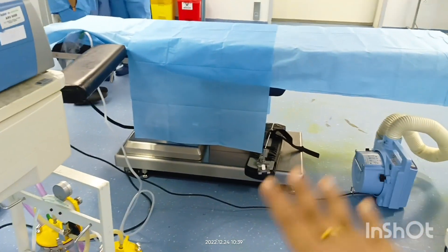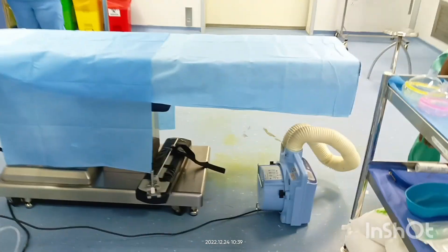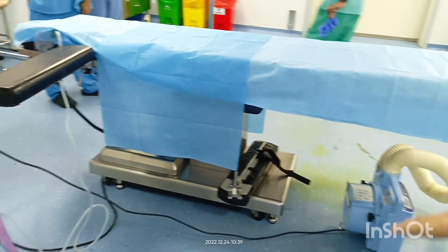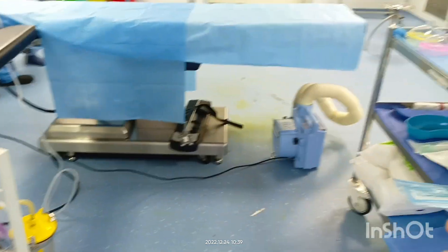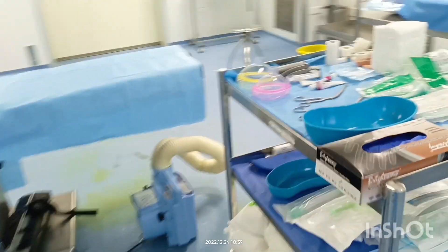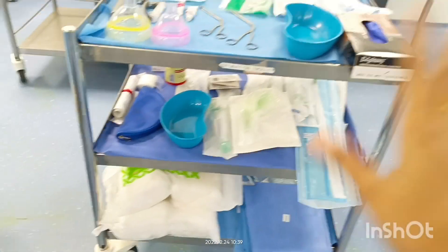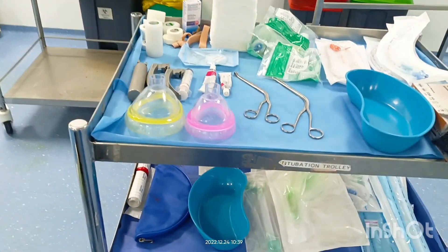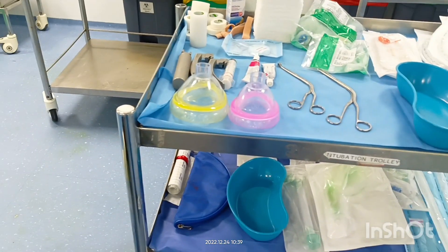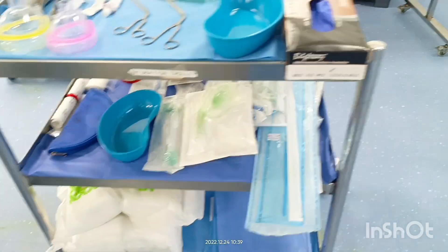We need to maintain the proper position of the patient on the bed. We have different types of positions depending on the case — like lithotomy position and supine position. Another important thing is the intubation trolley. This is very important — we should set it up with all the equipment: endotracheal tube, LMA, and any other intubation device the doctor may require.